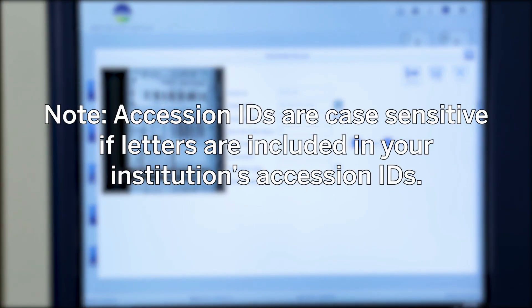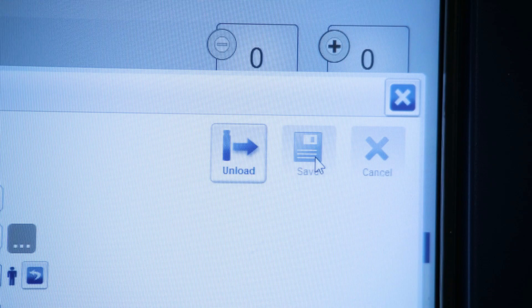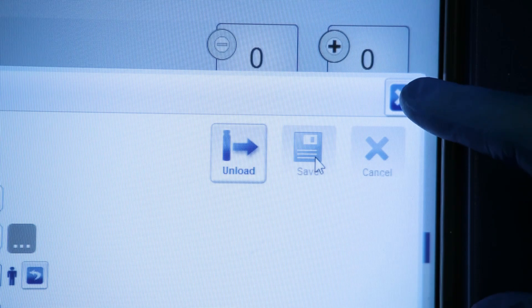Accession IDs are case sensitive if letters are included in your institution's accession IDs. Close the window by selecting the X when finished.